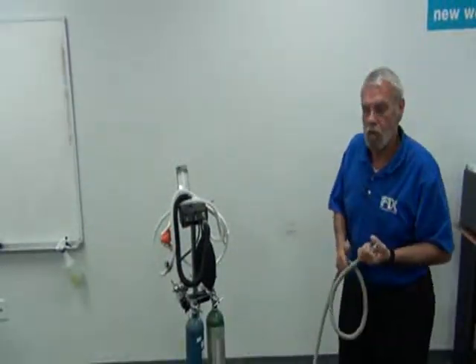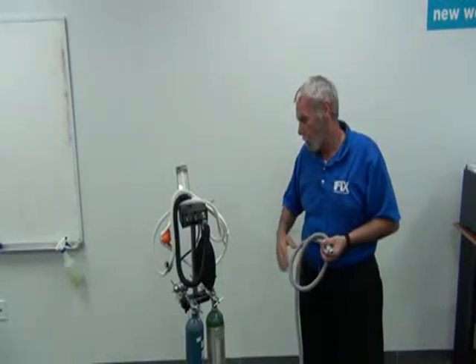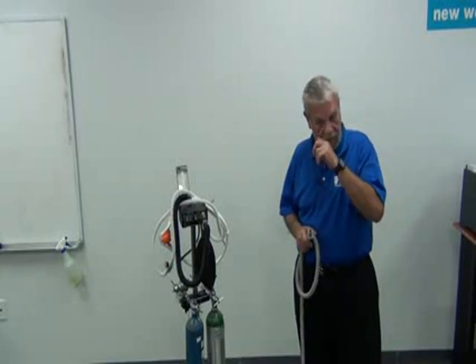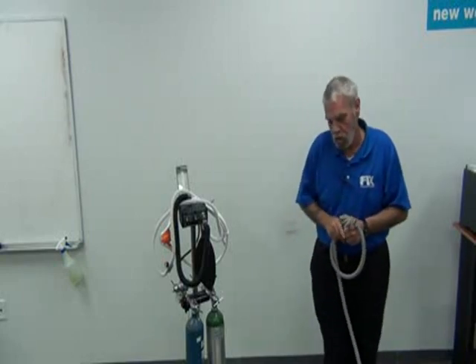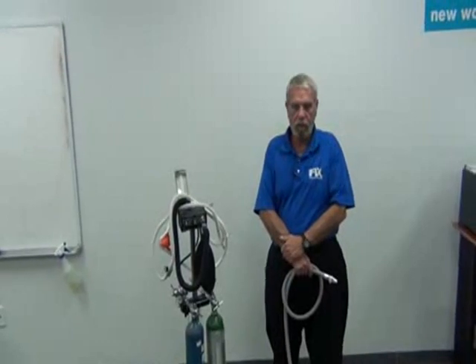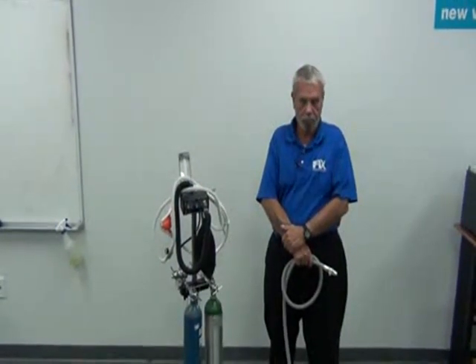You can have an office pre-plumbed for nitrous, and they use a tank room and the large welding style tanks with a nitrous manifold, and it delivers them to quick disconnects at the office. That's the central system. The central system requires very, very, very expensive plumbing and very, very, very thorough forethought before you put it in.